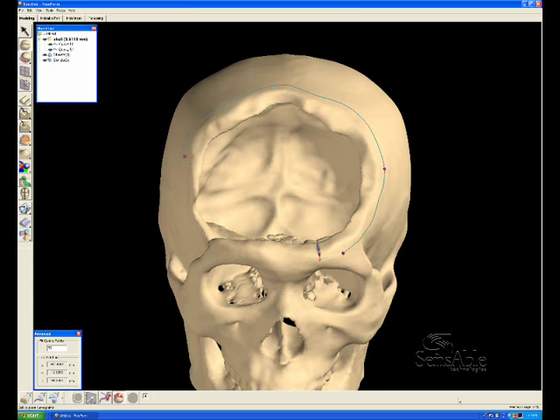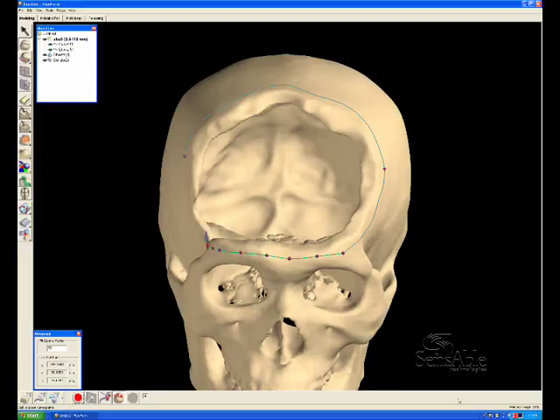Curves are then drawn on the surface of the model, offset from the beginning of the defect area. These curves will be the boundary for the beginning of our patch.